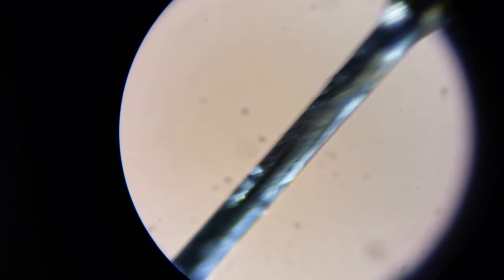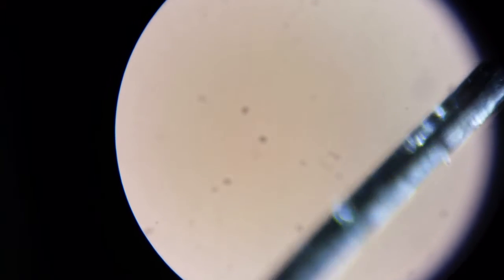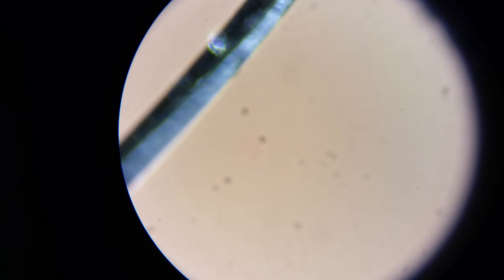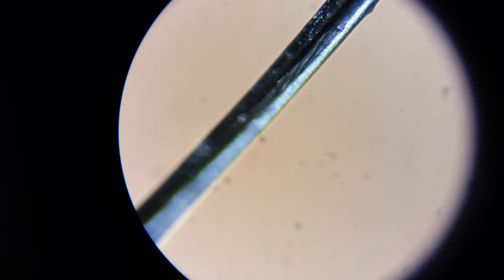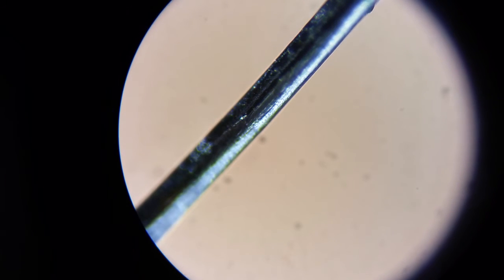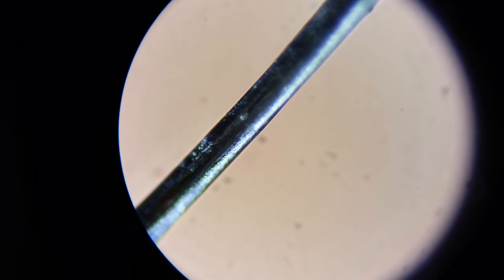We are going to move down the wire. You can see the square section aspect there very nicely. I can focus since I don't have this thing mounted. You can see we're having to focus down the device and not get every piece of it in focus at the same time.